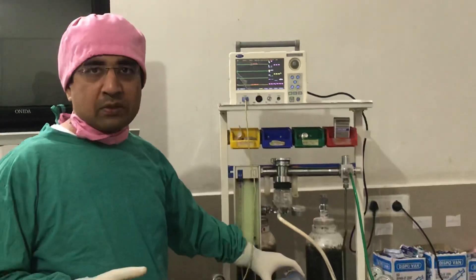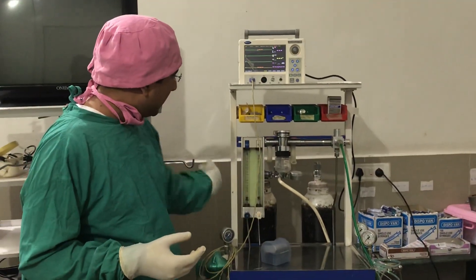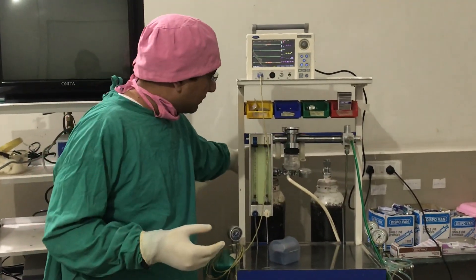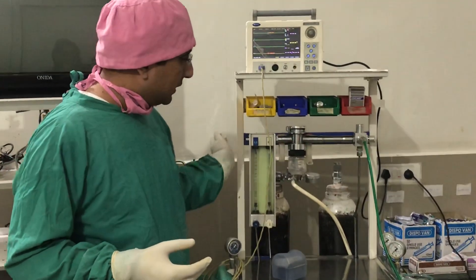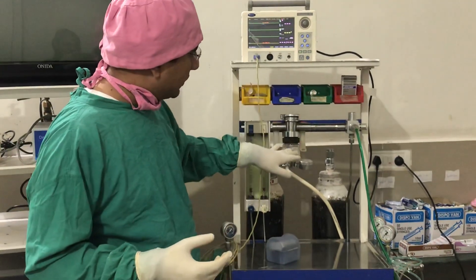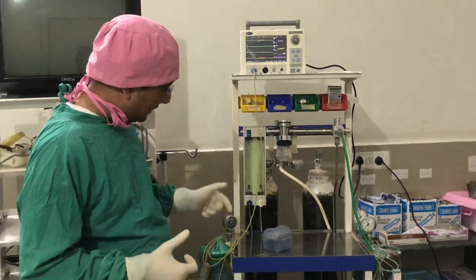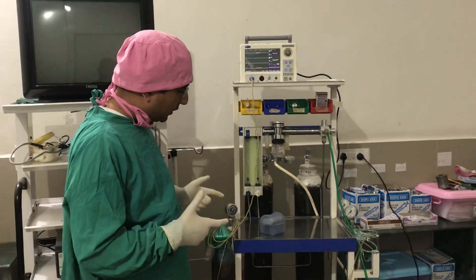I have a Pulse Oximeter, a gas bottle, a support system, and a circuit.